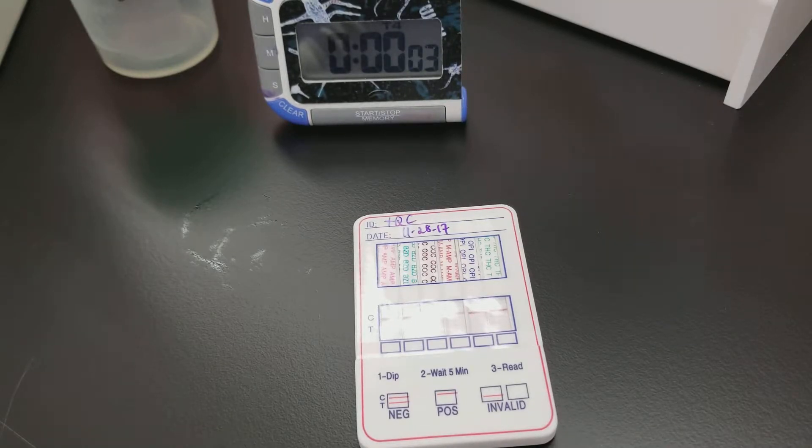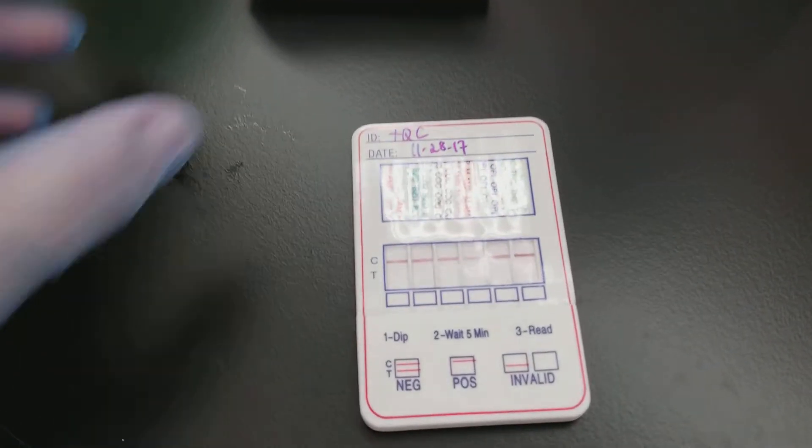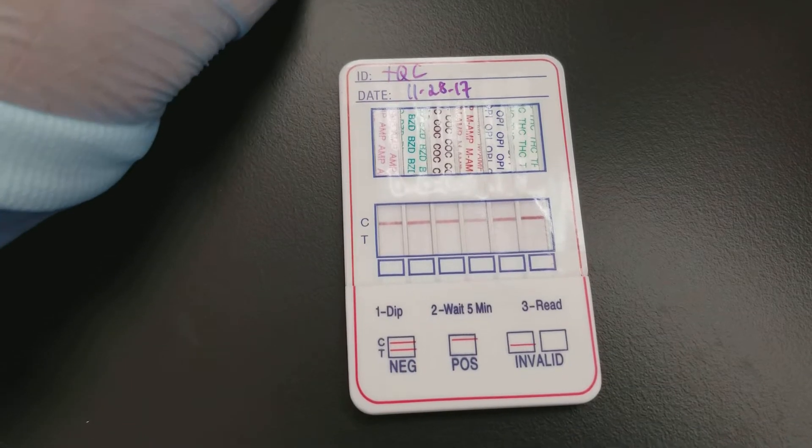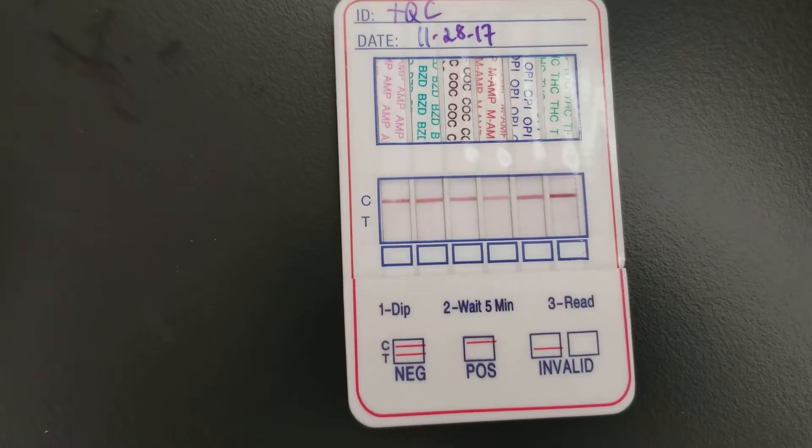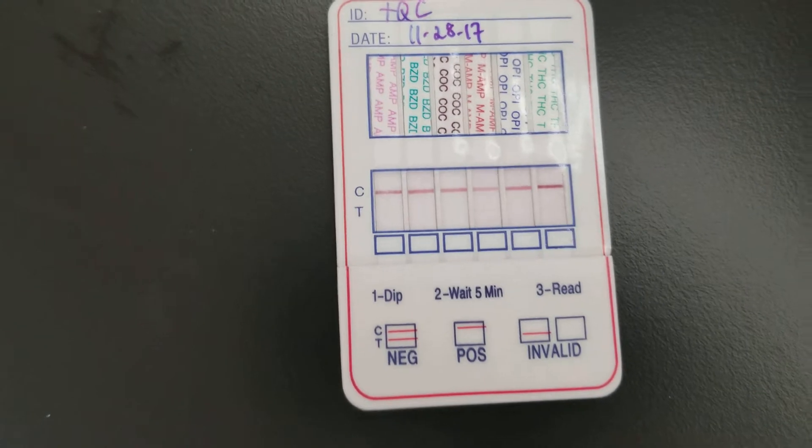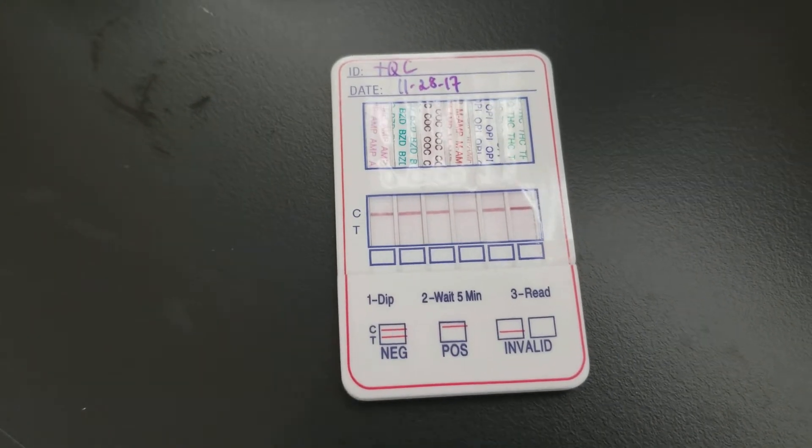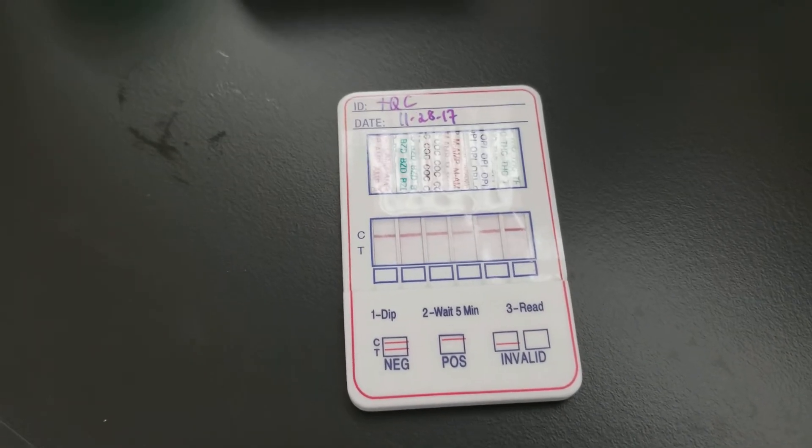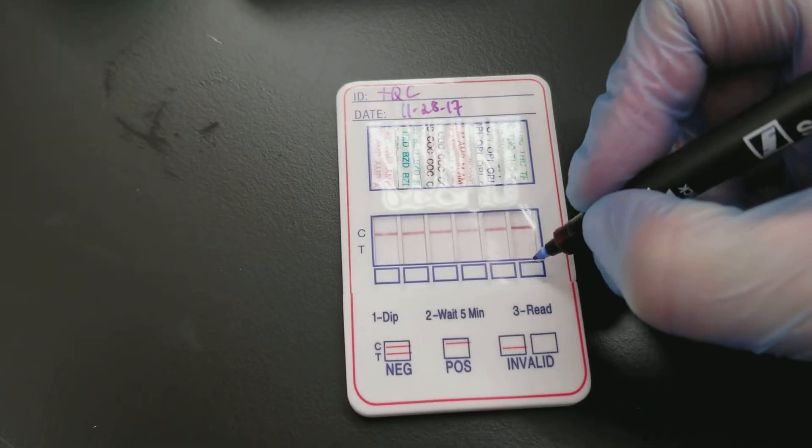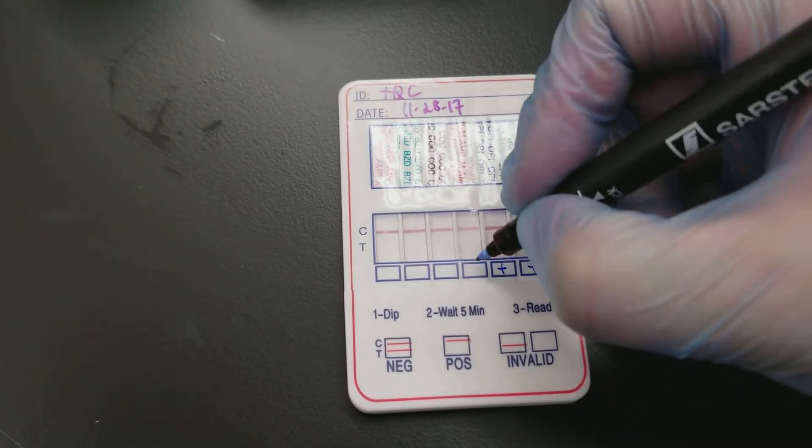The test time has ended. We're going to turn that off. Looking at that, they are all positive because the control line is the only line that is there. That's what the manufacturer says it should look like. So these are all positive.